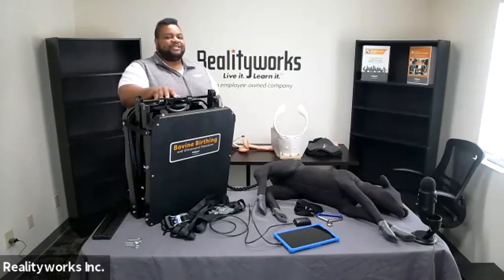The simulator is used to give students hands-on practice conducting bovine ultrasounds and birthing techniques with a variety of calf positions using pull straps. It can also simulate using sensing technology 14 ultrasound situations, and students can diagnose bovine pregnancies and common issues. The trainer can help students prepare for future careers including herdmanship, veterinarian, dairy and livestock, beef and dairy cattle farming, agriculture specialists, and more.